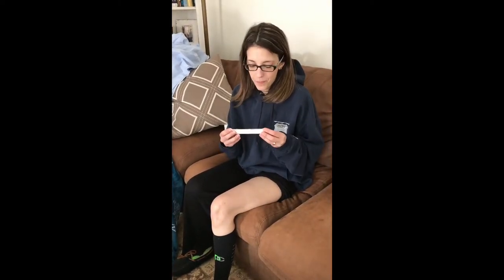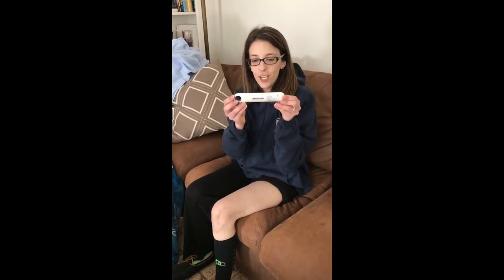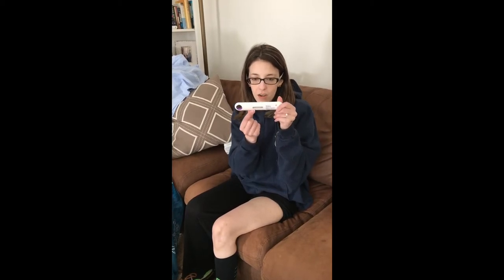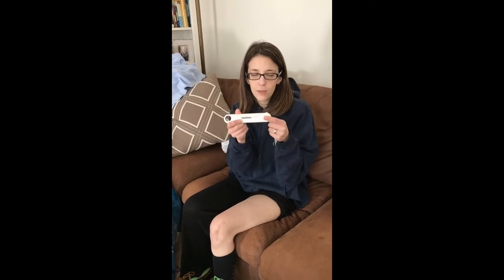Can you turn the music down a little bit? This is it — you have to take it out of the fridge for like a half hour. So this is the auto-injector of Benlysta. They say to look in here and make sure that it's clear and there aren't bubbles — bubbles are okay but not fogginess or anything like that. And make sure it's not expired on the back.